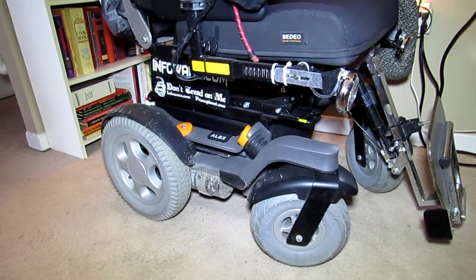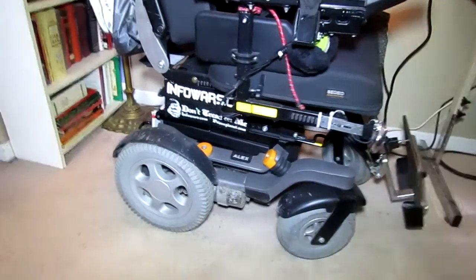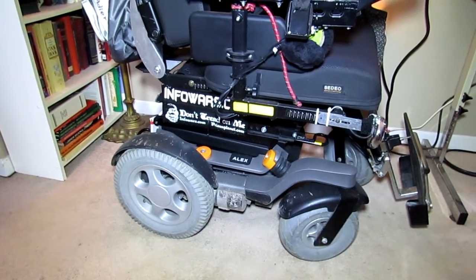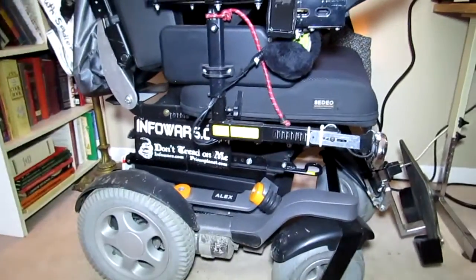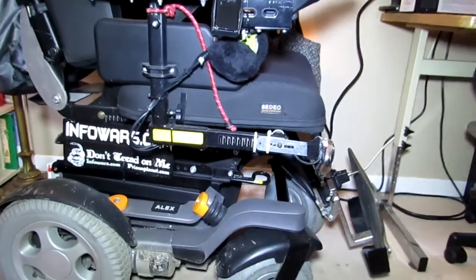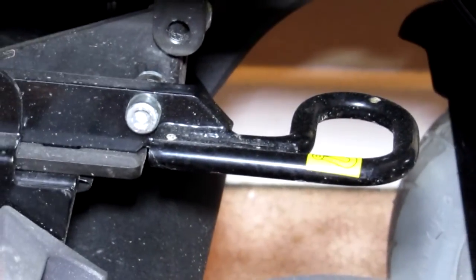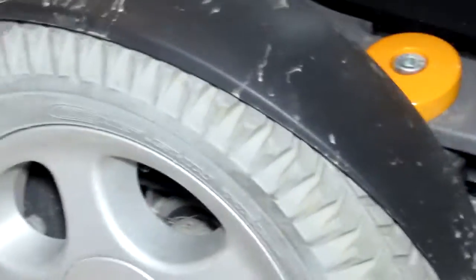There are people acting with criminal negligence — they've been advised and are aware of the danger to my life, and they just don't care. They can't plead ignorance in court because I've published previous articles describing this problem. Now I'm going to zoom in to show you the front loop — it's basically spring steel and looks really solidly attached, but it's not. When it's tied down on the bus, everything in this chair moves.